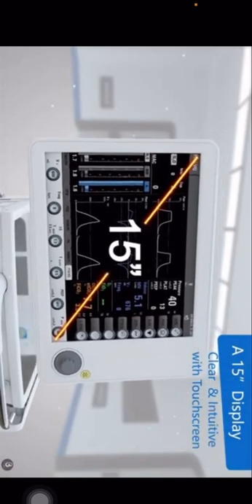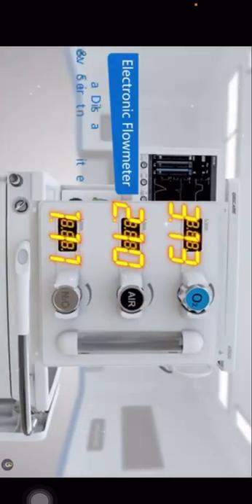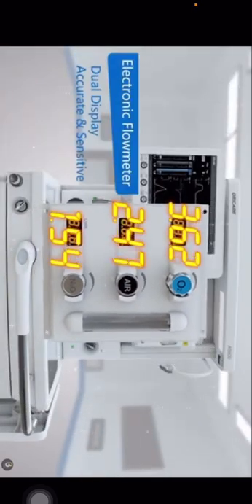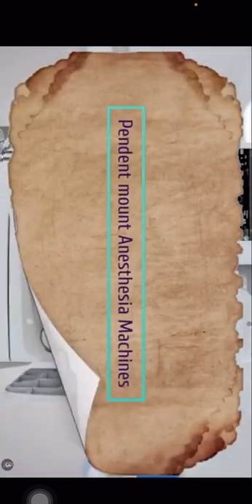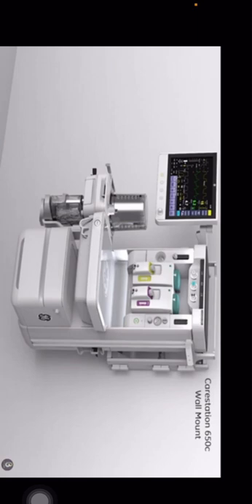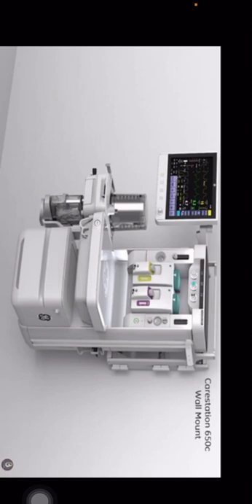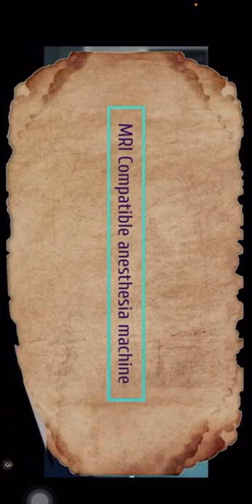The conventional anesthesia machine used in hospitals is a mobile unit for patient care, typically operated in operating theaters and induction rooms. The machine can be moved from one place to another. The pendant-mounted anesthesia machine is used in operating theaters or procedure rooms, suspended above the ground, which also helps with floor cleaning.